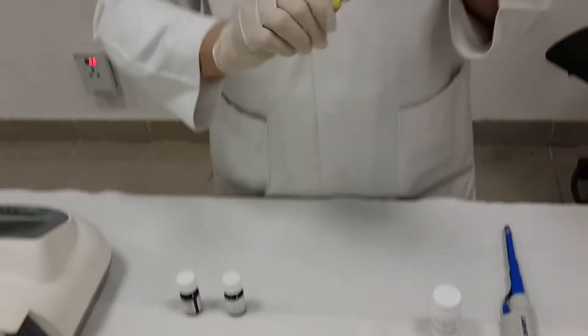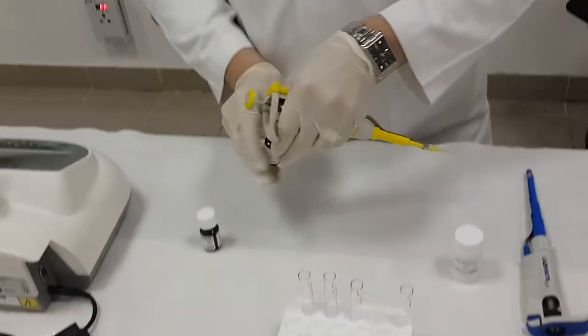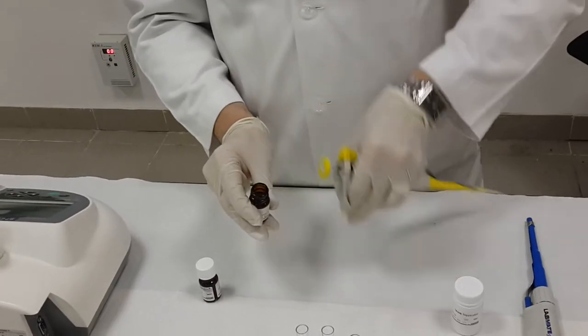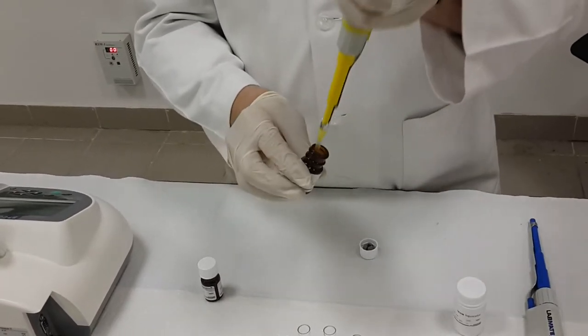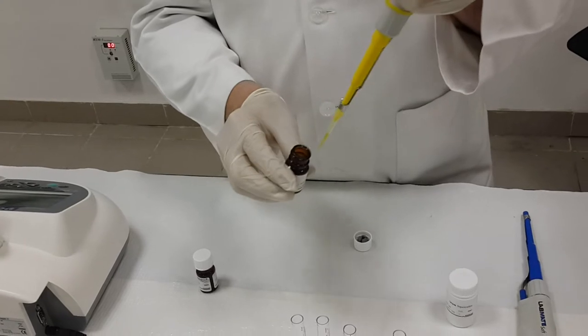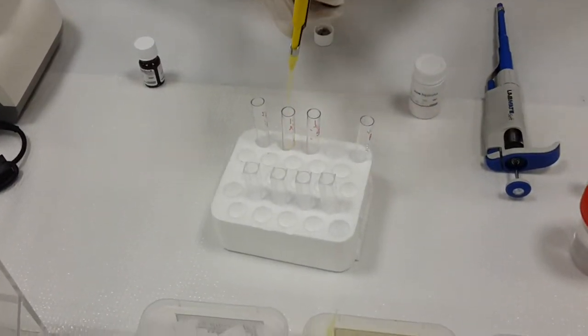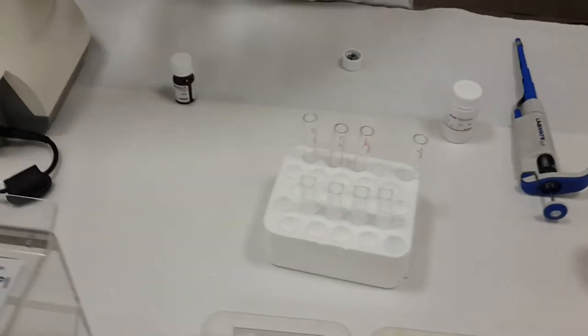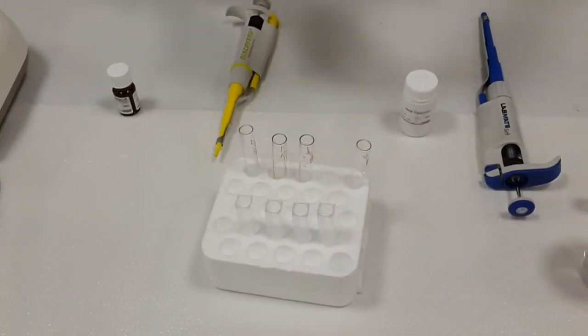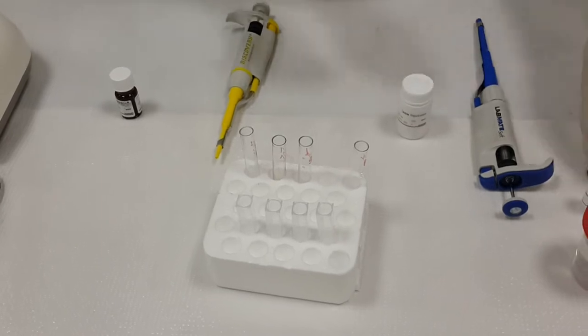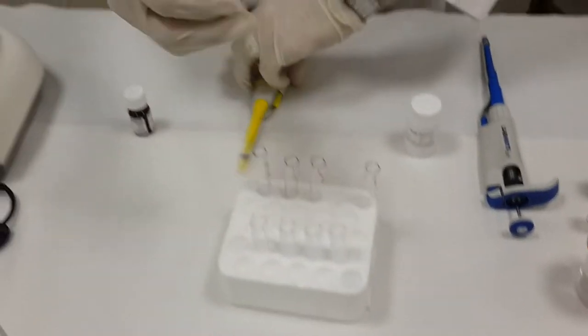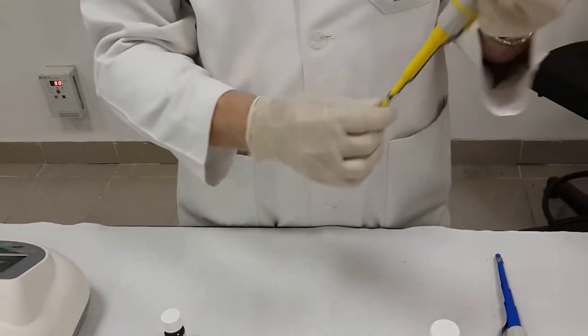Go to the samples. Go to sample 1, which represents male sample. And I have to remove this one, close, and put the tip and fix it very well.